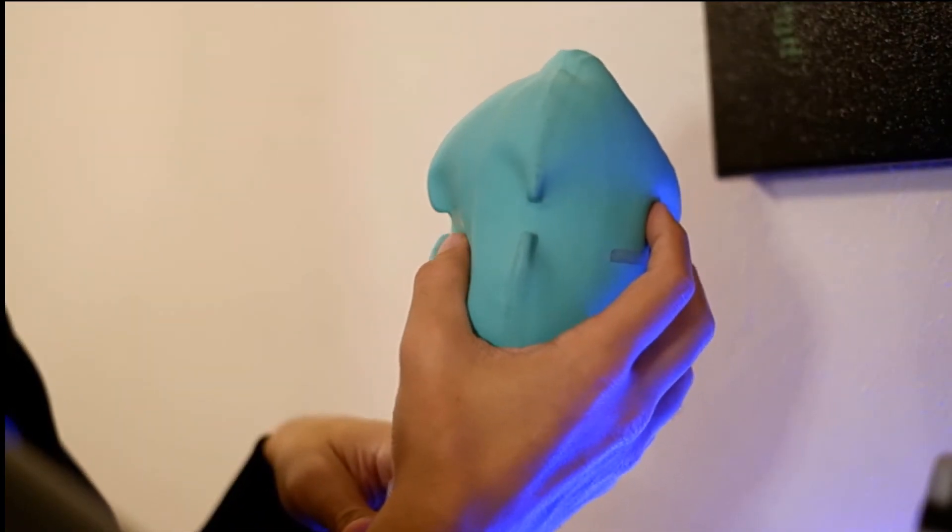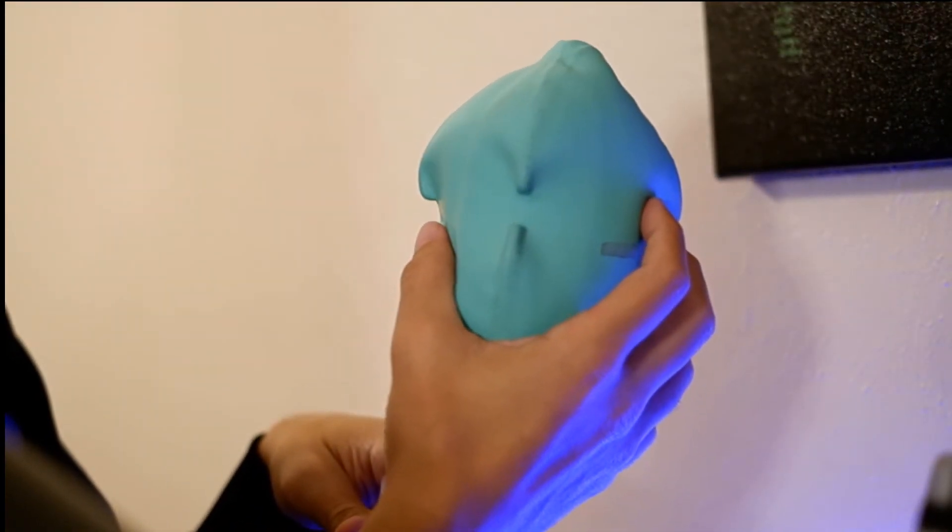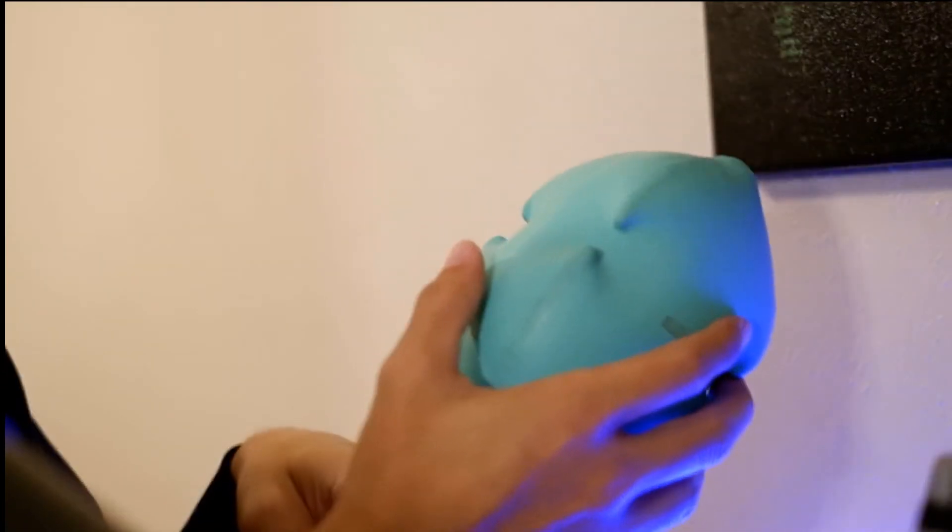As soon as I lower the PEEP, you see the bag, it's like flimsier.